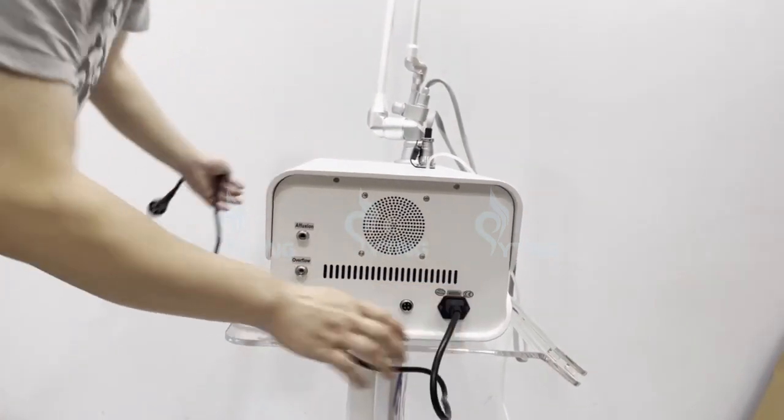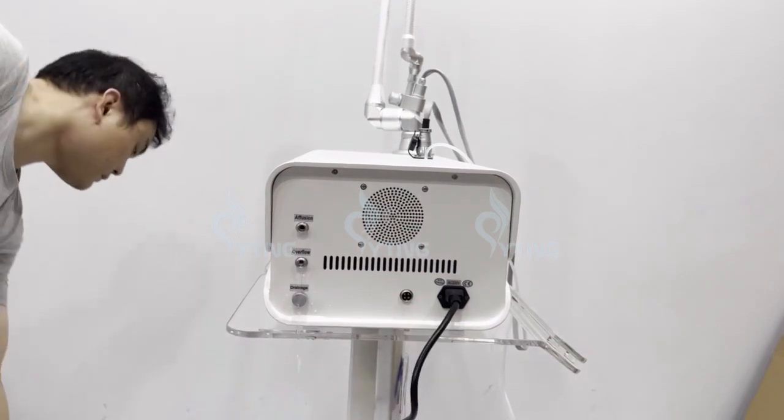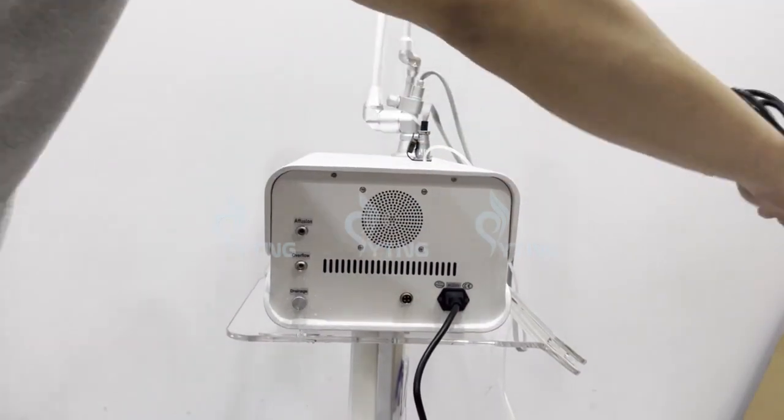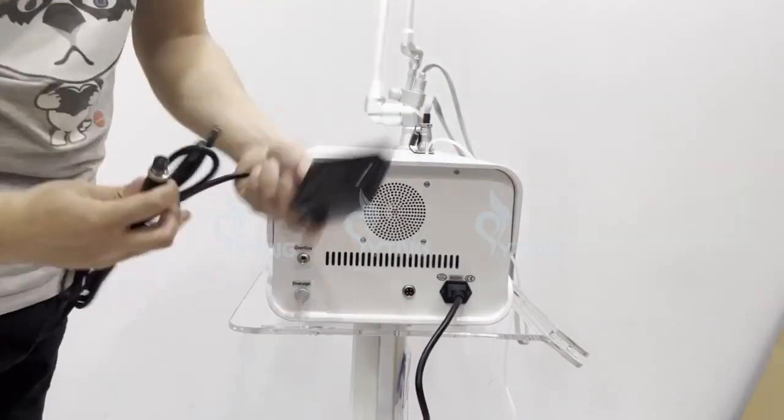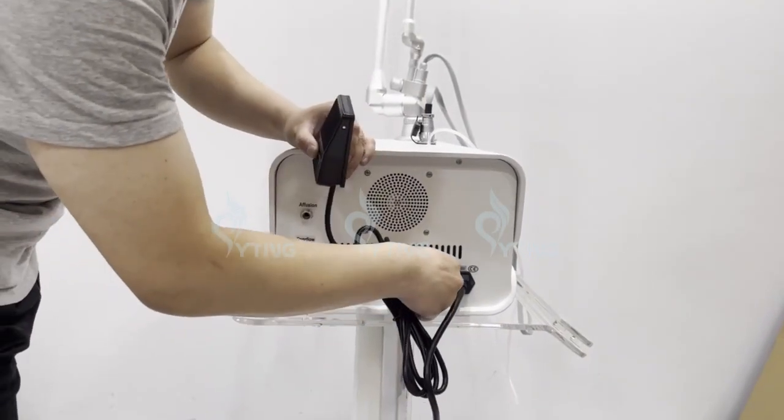You can add the power hole. Connect the pedal.